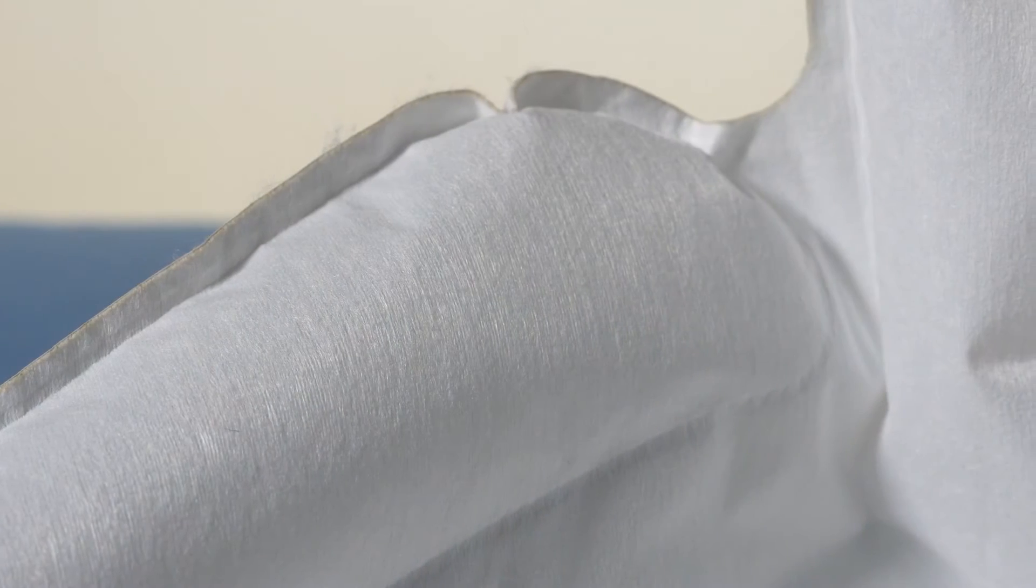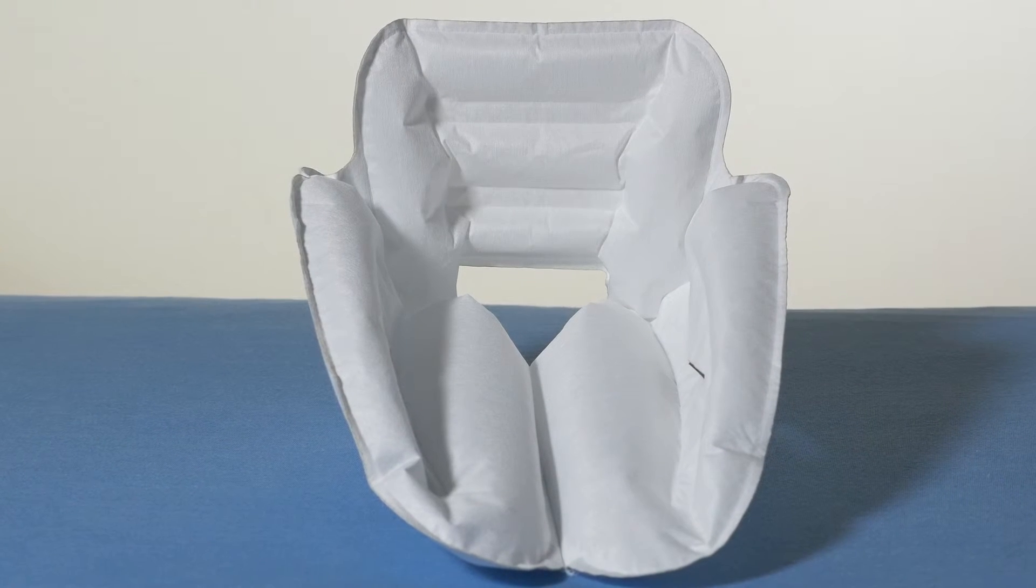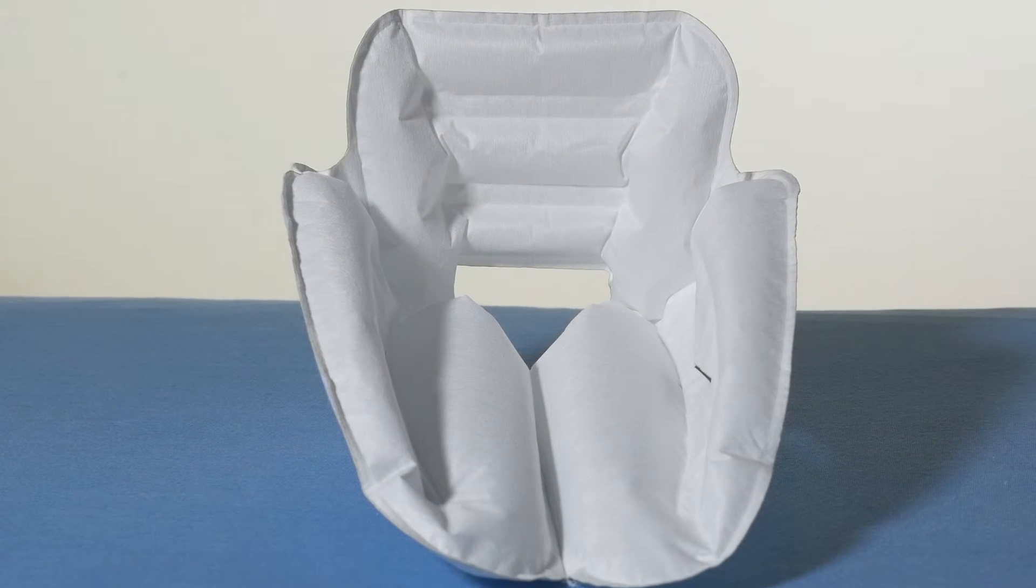Heel Up Short has some important features that provide several advantages. The outer surface of felt, for example, provides superior drainage of moisture and heat from the skin. The felt also ensures that the skin doesn't stick to the surface of the cushion.